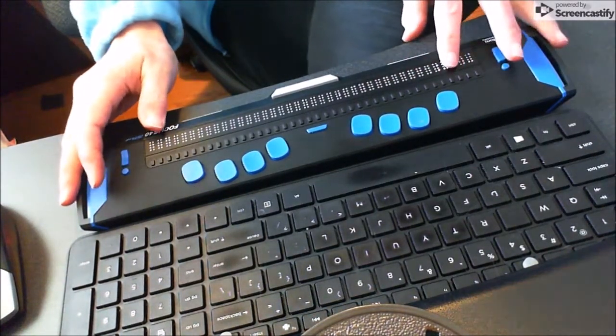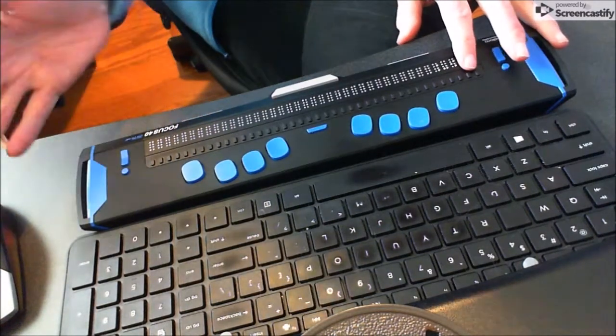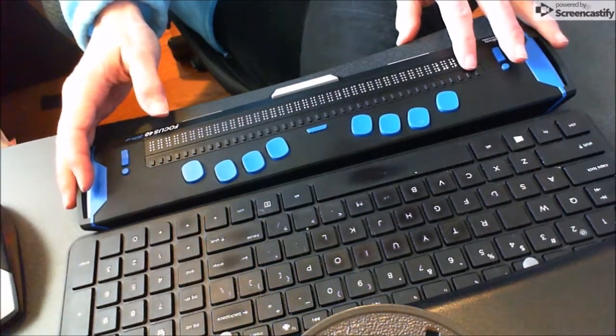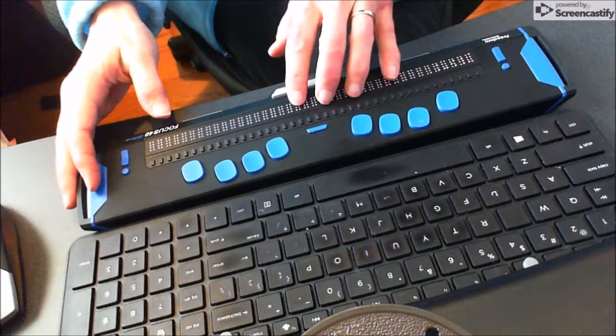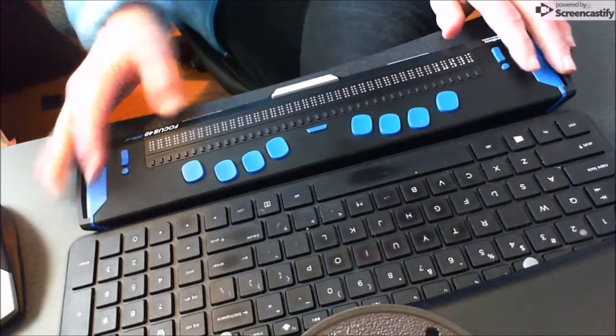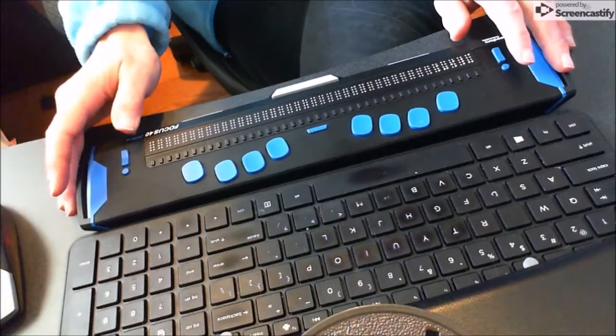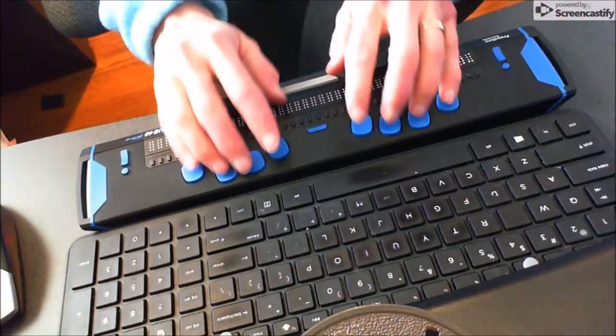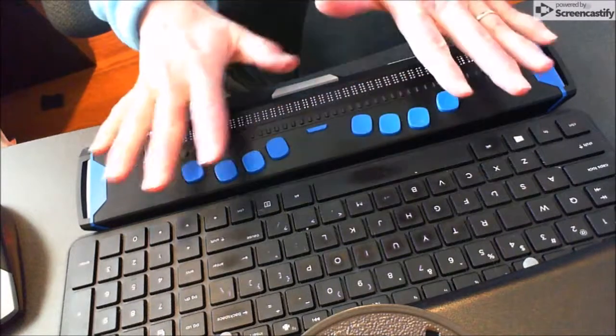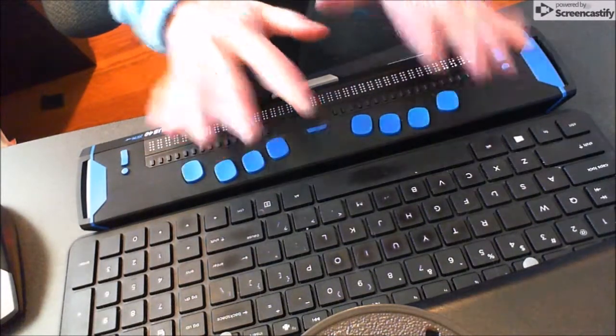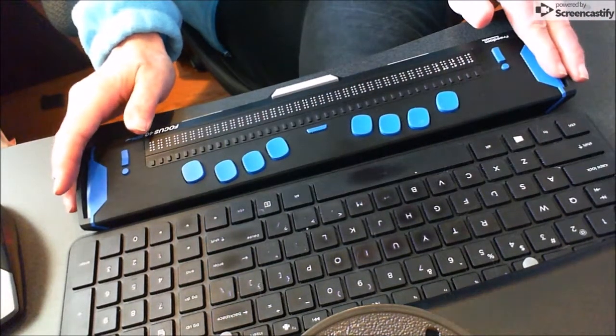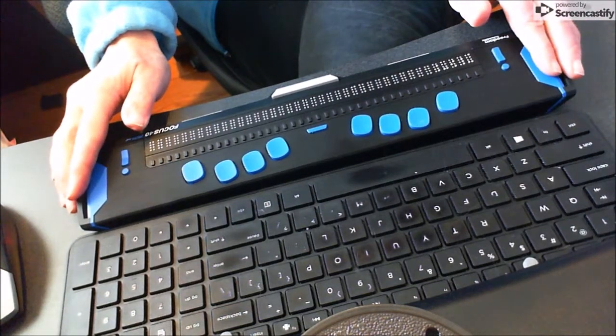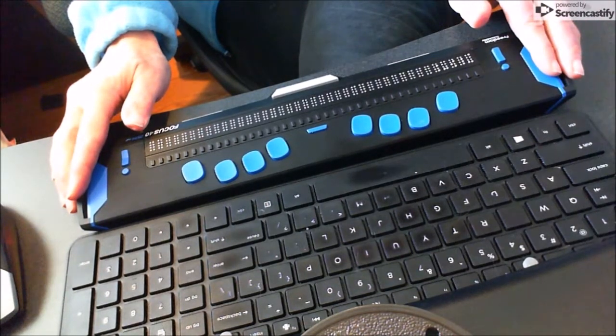Those are probably the two biggest ones. You might also want to deal with your calendar and many other options to adjust your display. Very handy. But beginner kids accidentally hit that button, and then it loses focus because they accidentally hit that configuration menu. That is how you easily adjust all of those options.